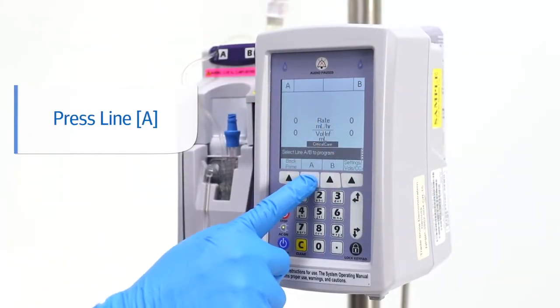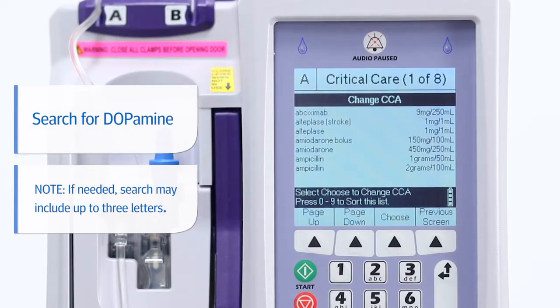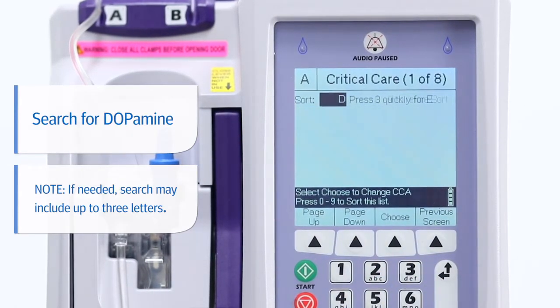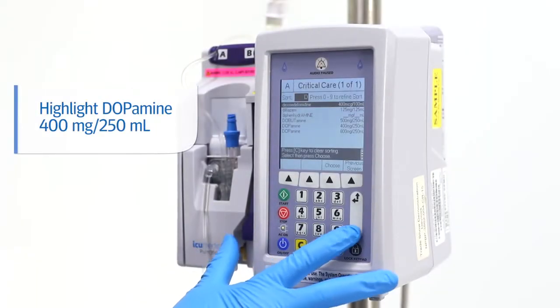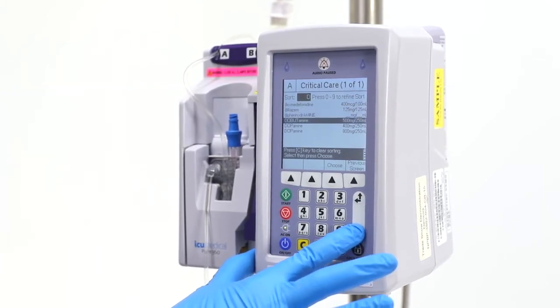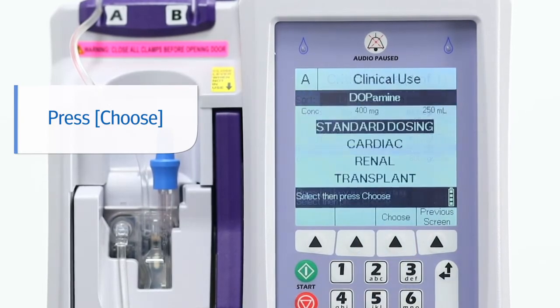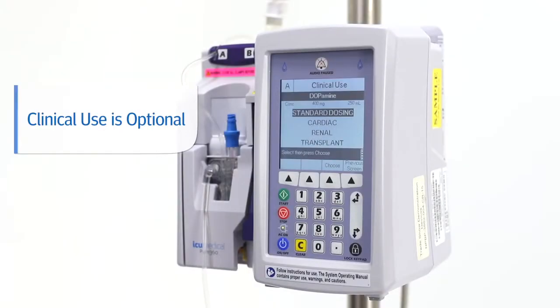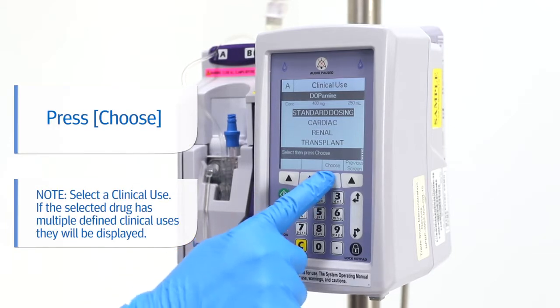Start by pressing line A. Next, using the alphanumeric keypad, search for the drug by pressing the three key once to find all medications starting with the letter D. Once you've located dopamine, select the down arrow to highlight the drug, then press choose. Next, select a clinical use area. Here we will choose standard dosing, then press choose.